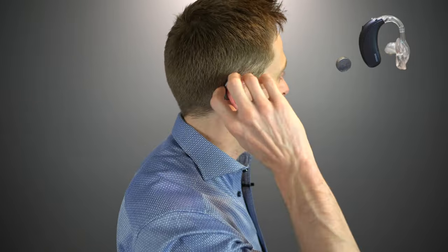Now let me put in the ultra power hearing aid. This one is going to be your larger hearing aid. It does use that 675 battery and it is intended for individuals with a severe to profound level of hearing loss — you need a lot of power when you have that severity of loss. You can see that it's bigger than the PR, but it looks sleek as well, which is really nice.